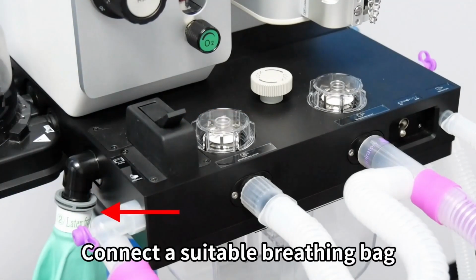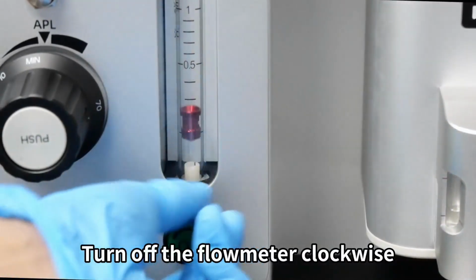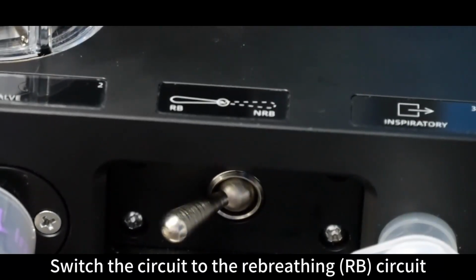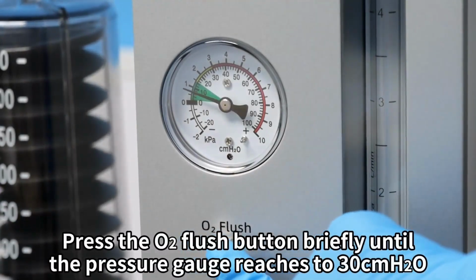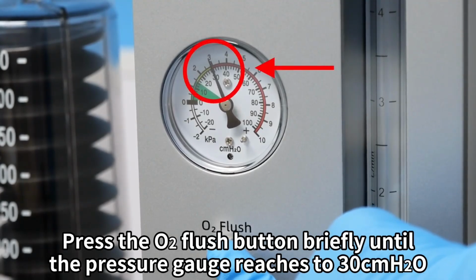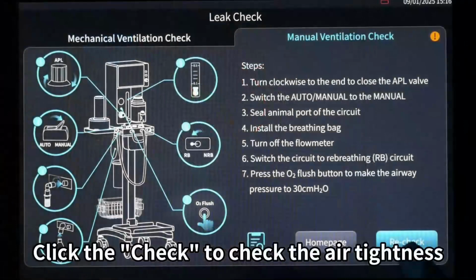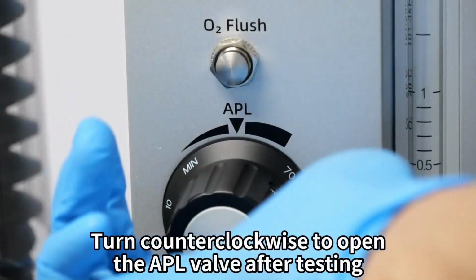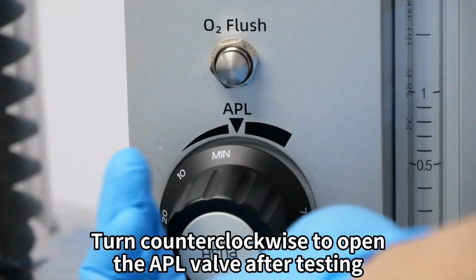Connect a suitable breathing bag. Turn off the flow meter clockwise. Switch the circuit to the rebreathing RB circuit. Press the oxygen flush button briefly until the pressure gauge reaches 30 centimeters of water pressure. Click the check to check the air tightness. Turn counterclockwise to open the APL valve after testing.